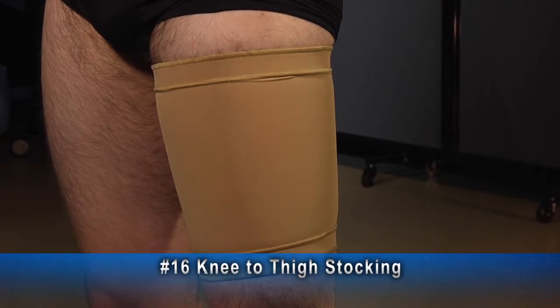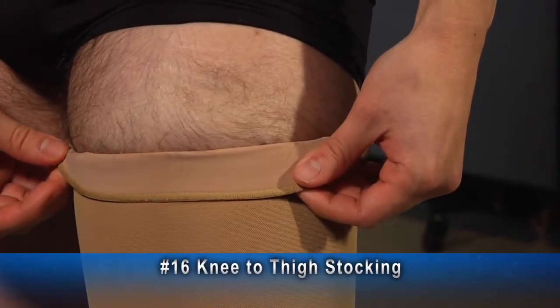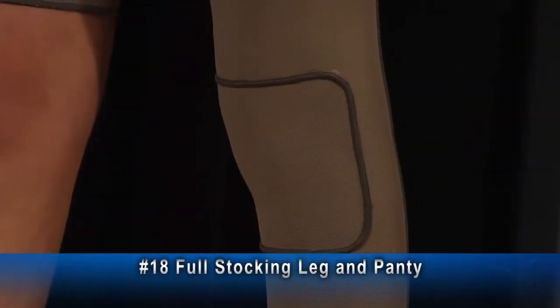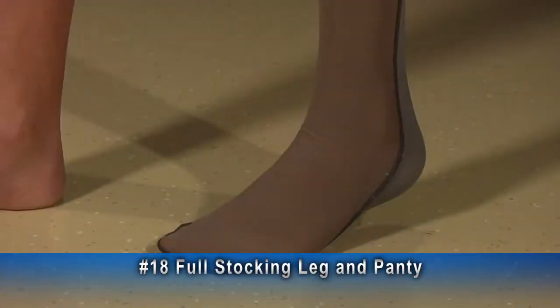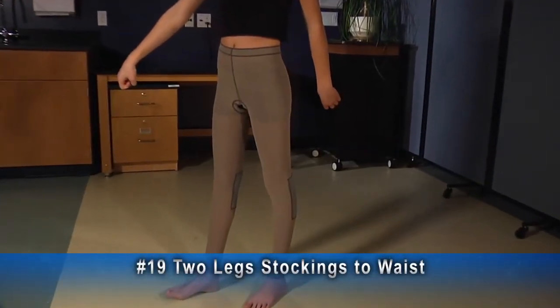This example of a number 16 is a knee-to-thigh stocking with a standard one-inch band at the top. It is fully lined with regular lining material throughout the entire garment. Here is an example of a number 18 leg and panty — knee lining on the left, an expansion panel on both sides, and a band at the leg. This stocking has a self-enclosed toe.